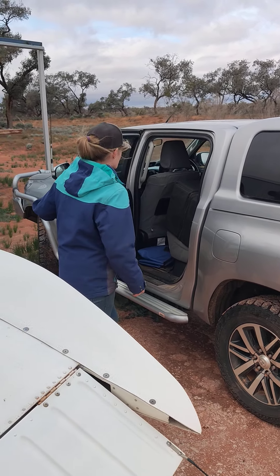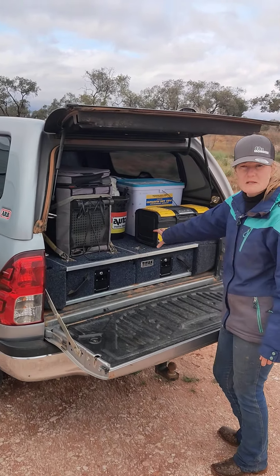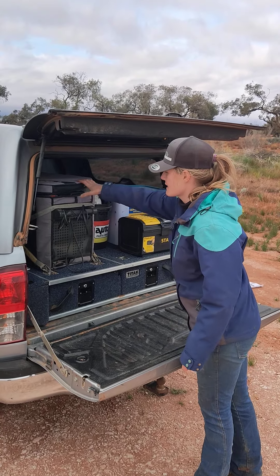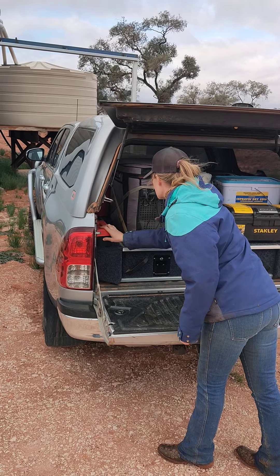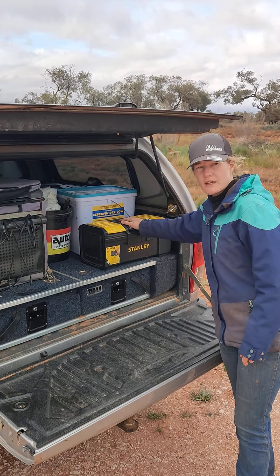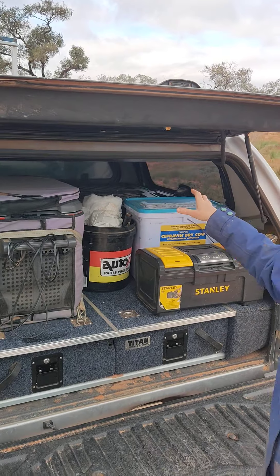I've got my casework and all that in there as well. In the back of my vehicle I've got fully lockable drawers where I keep all my prescription medications, a fridge where I keep vaccinations and refrigerable antibiotics. I've got my equine dental gear kept in a box, gloves, disinfectant, disinfectant equipment, cleaning equipment, a vet box, and also my anaesthetic machine and all my surgery gear kept in dust-proof boxes.